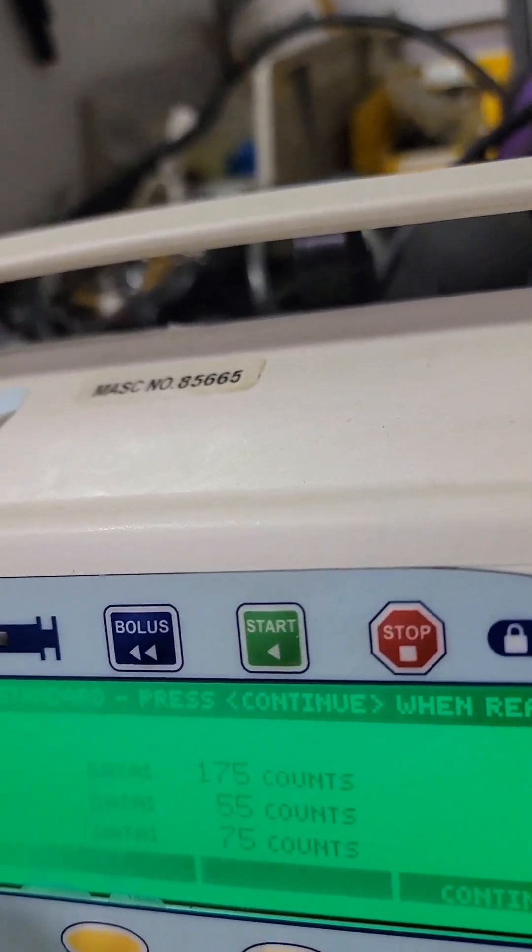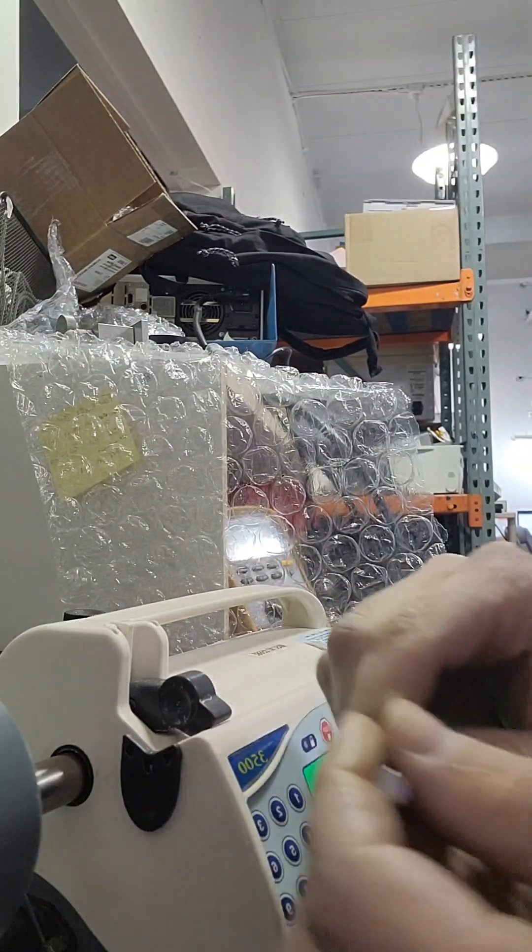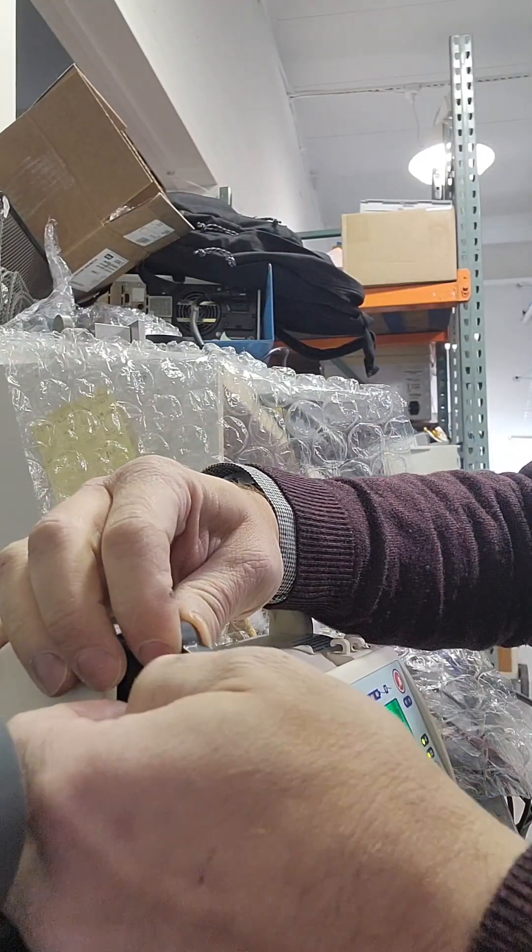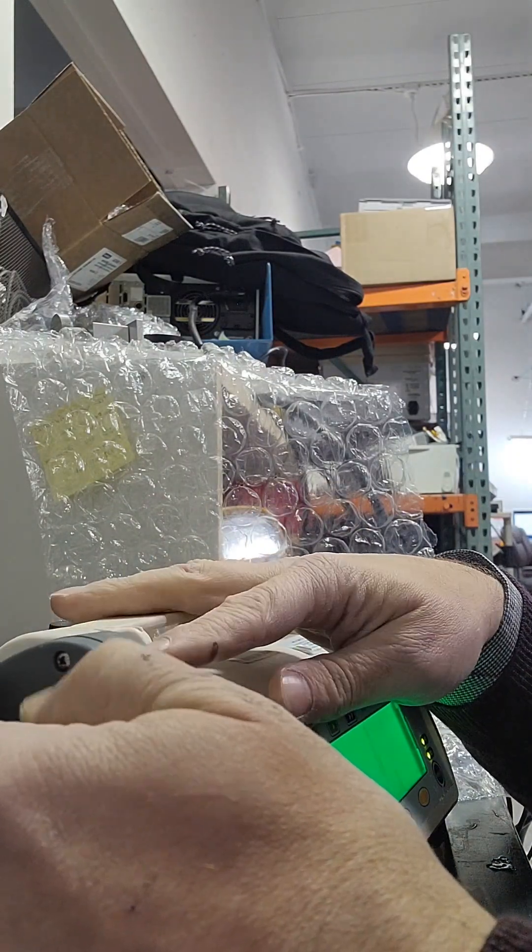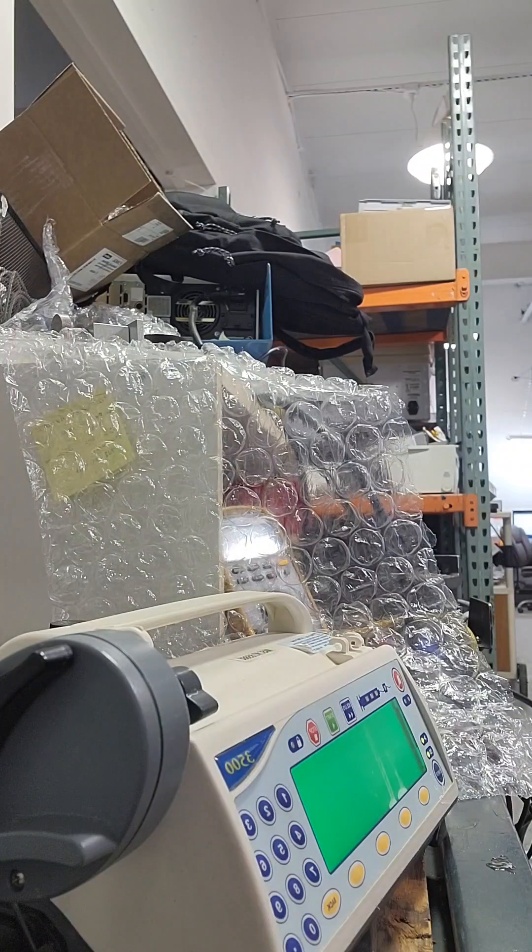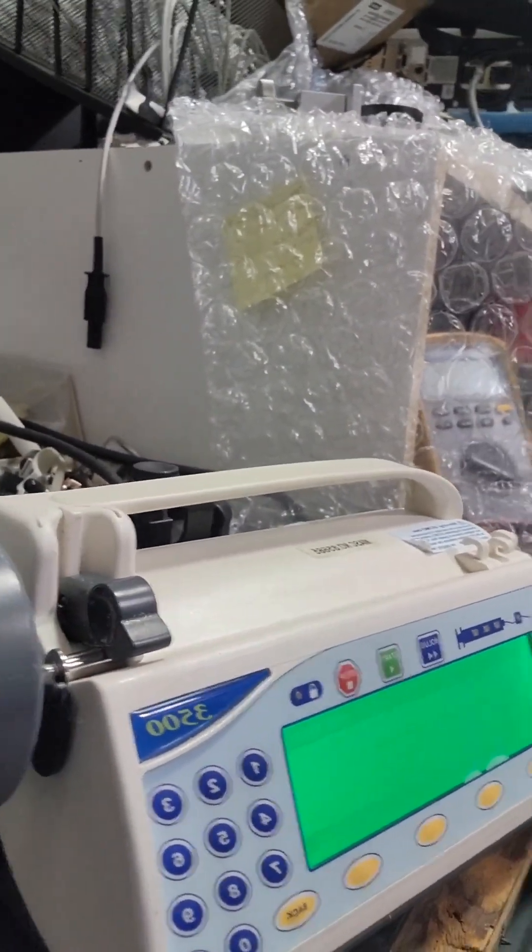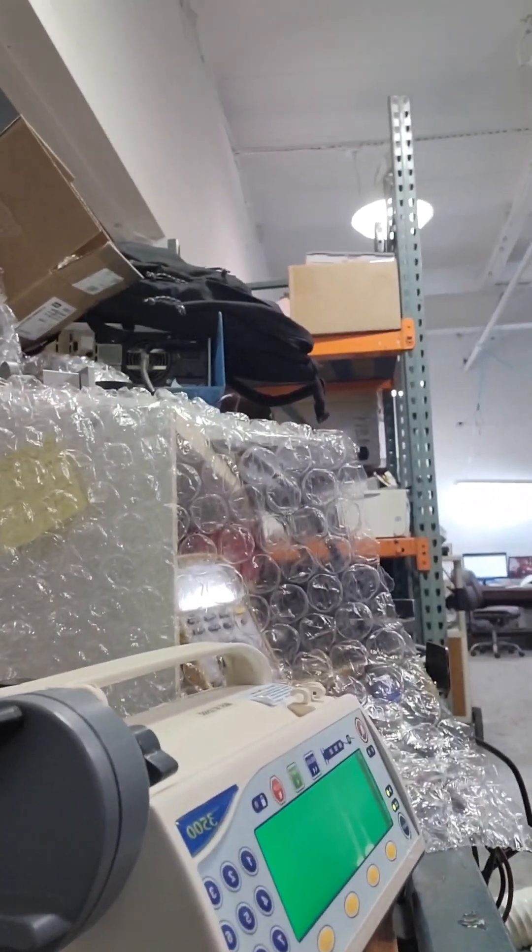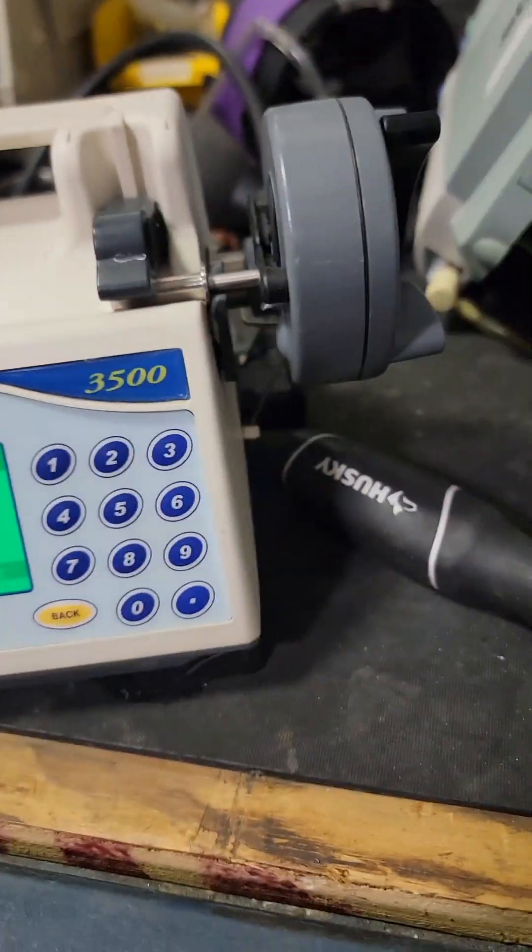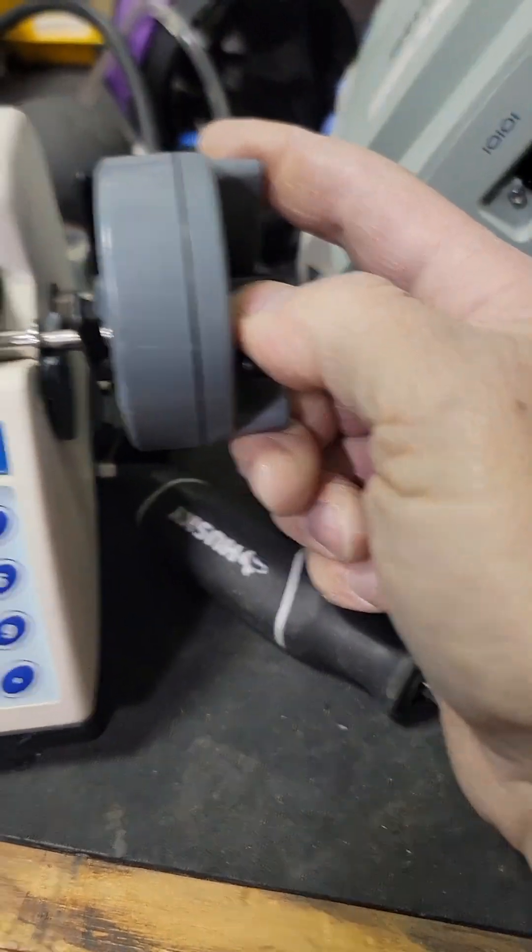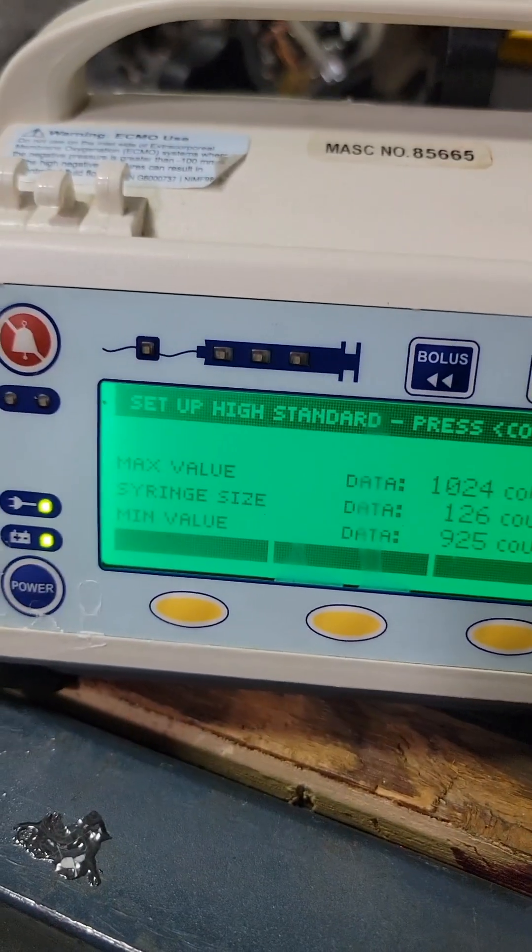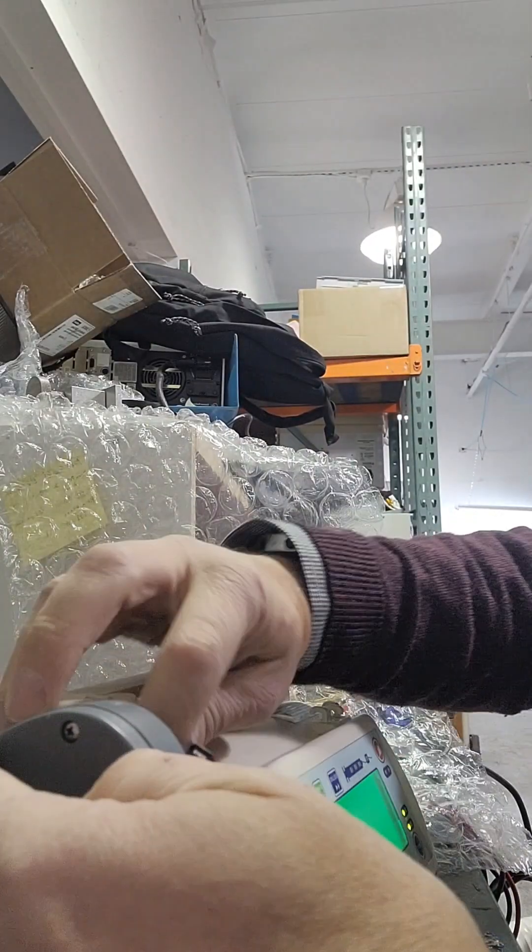Put it down. Now it's gonna come to low standard. Hold the flippers open, put it up here and then press continue. Next to set up the high standard, so now we set up the little guy.